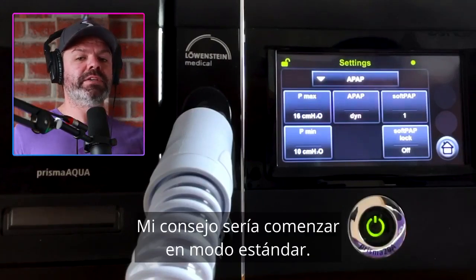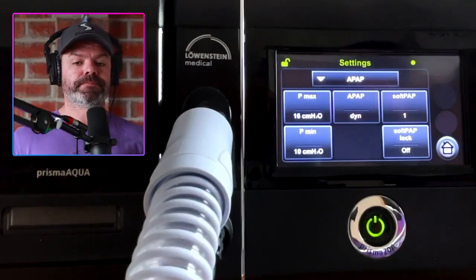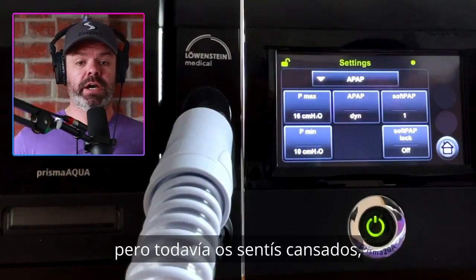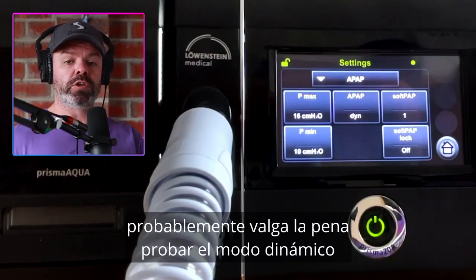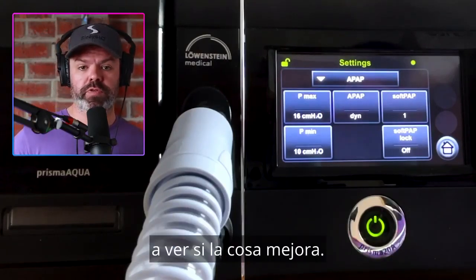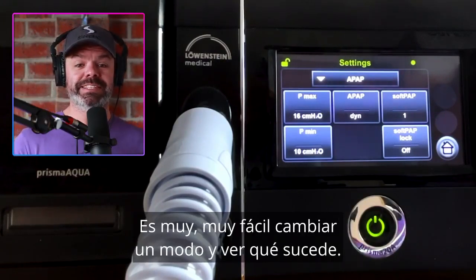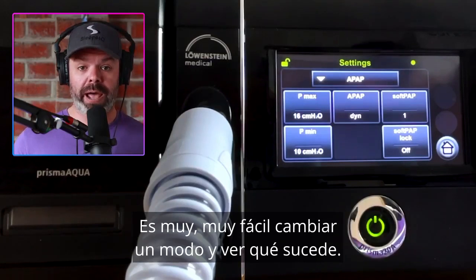My advice would be to start in standard mode. If your AHI is really low but you're still feeling tired and you're not sure what's going on, it's probably worthwhile trying dynamic mode to see if things improve. That's the beauty of CPAP settings — it's very easy to change a mode and see what happens.